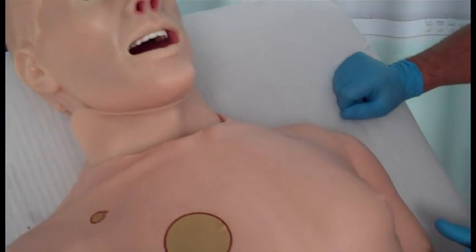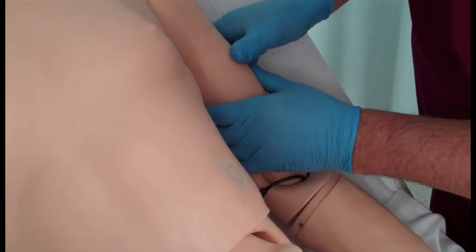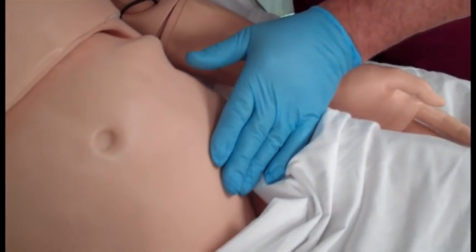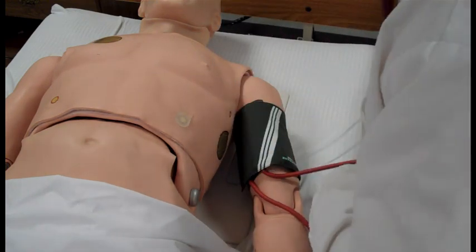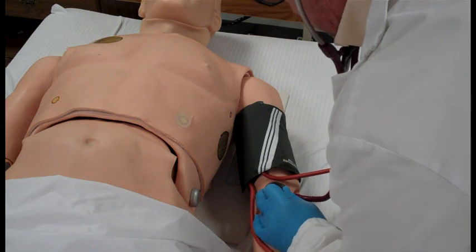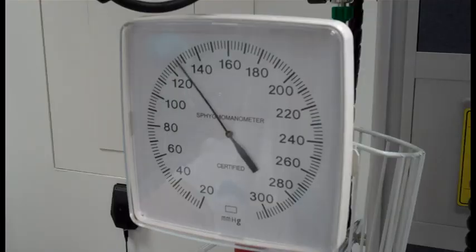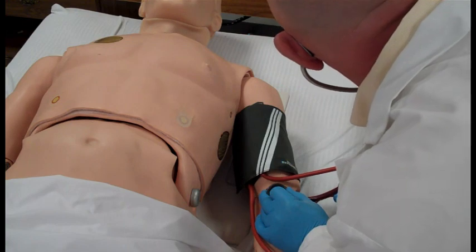Hal has palpable pulses that are dependent on his blood pressure. Available pulses include carotid, brachial, radial, femoral, and pedal. Distal pulses can be disabled to simulate severe hypotension. A manual blood pressure can be obtained bilaterally by placing the cuff around the upper arm with the cuff mark at the medial site of the biceps brachii, about an inch above the anterior elbow, which is the correct site when taking the blood pressure on real patients. Inflate the blood pressure cuff and then auscultate Korotkoff sounds as you would a normal patient.